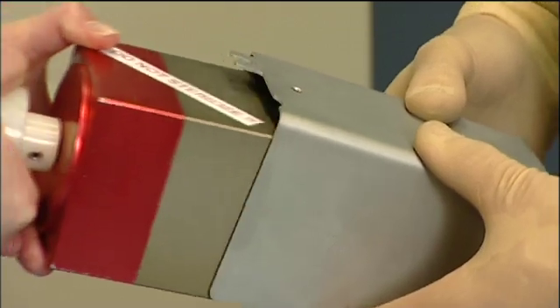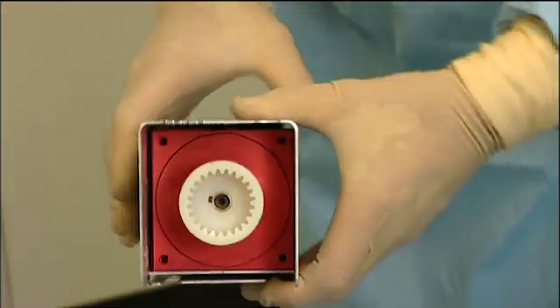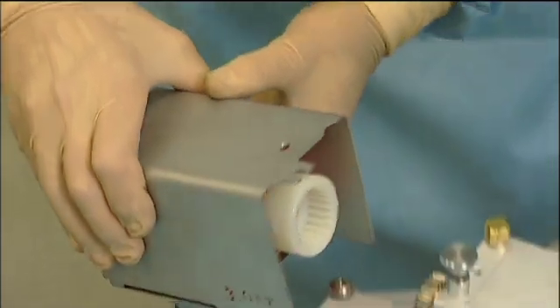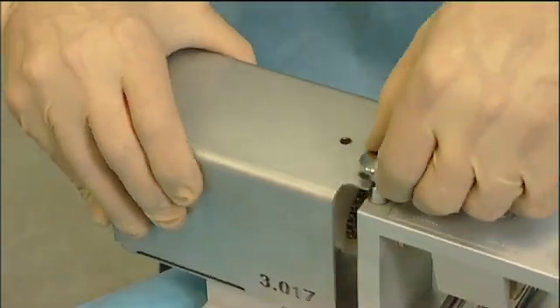Sometimes the MEEK machine is provided with a different type of pneumatic motor for less air consumption. This block shaped motor is also not to be sterilized. It is encapsulated in a sterile housing.